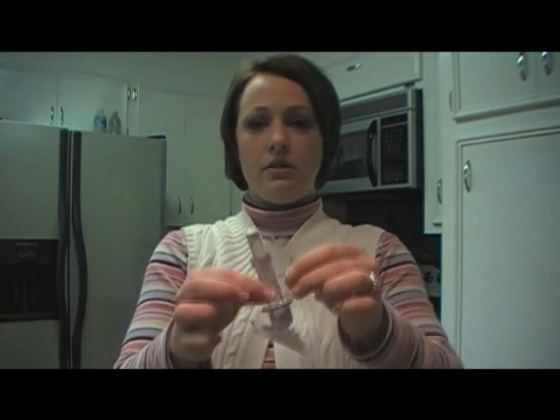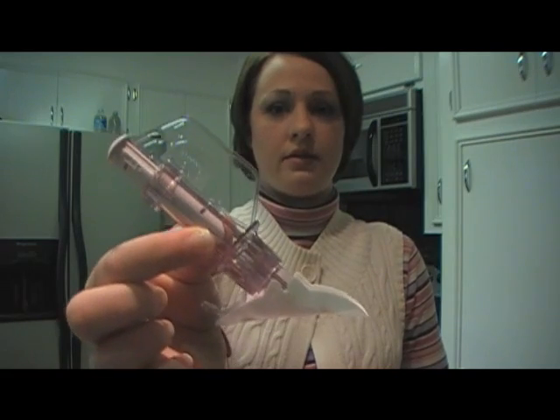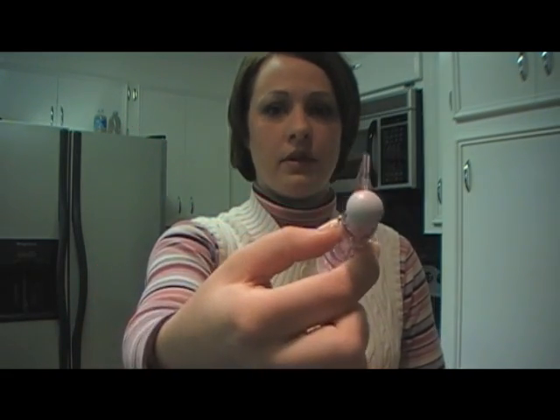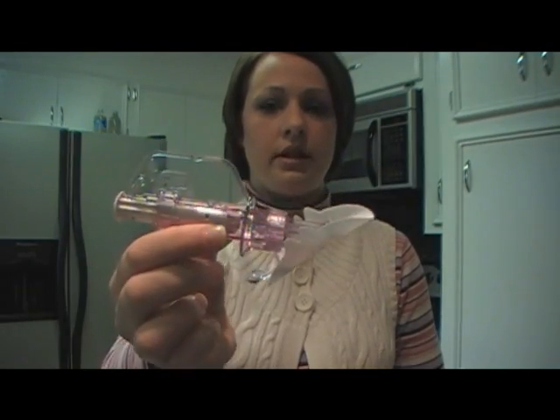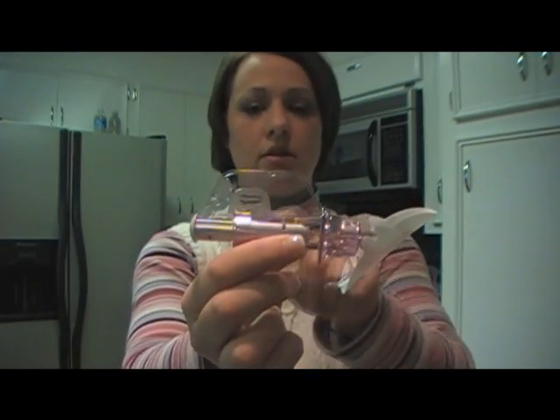Now I've got it open, and just so you can see it a little bit better, that's what it looks like. The little plunger up there, and then that's the bottom. And this is the little wing thing that you'll use to take the sensor out. I tried a few times to take it out without using it — it's a lot harder.